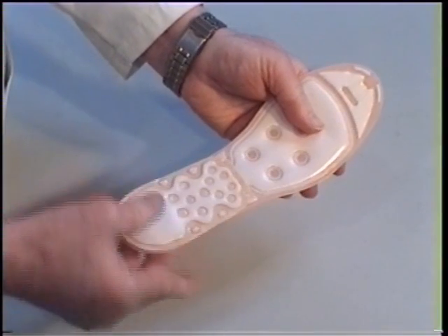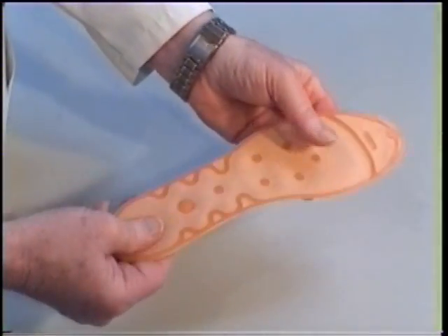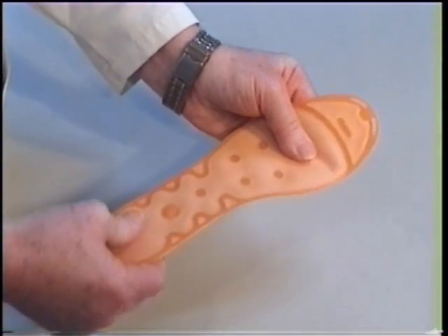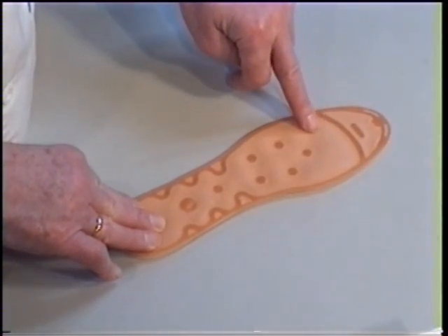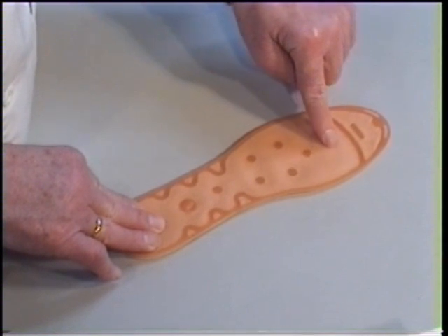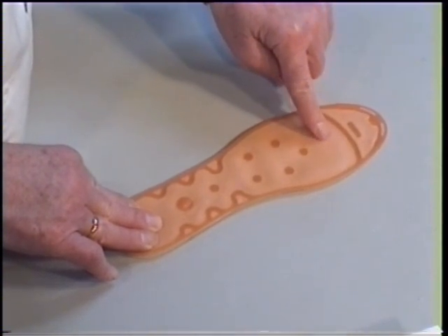This combination of shock-absorbing and dynamic pressure relief of the heel, together with the ongoing and persisting training movement of the foot's lengthwise tendon, will usually create a fast improvement of the heel problem. The MEDICOVI Twin-heels will simultaneously provide a relatively large relief of the forefoot through the movement of the water. This will all the time bring about a change in the load of the ball of the foot and thereby reducing the pressure around pain-generating areas.